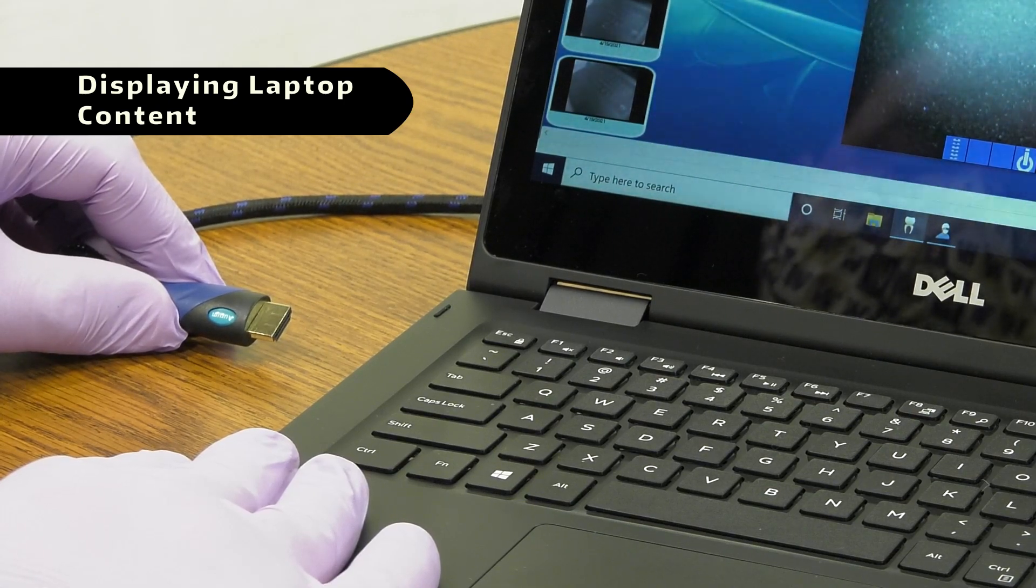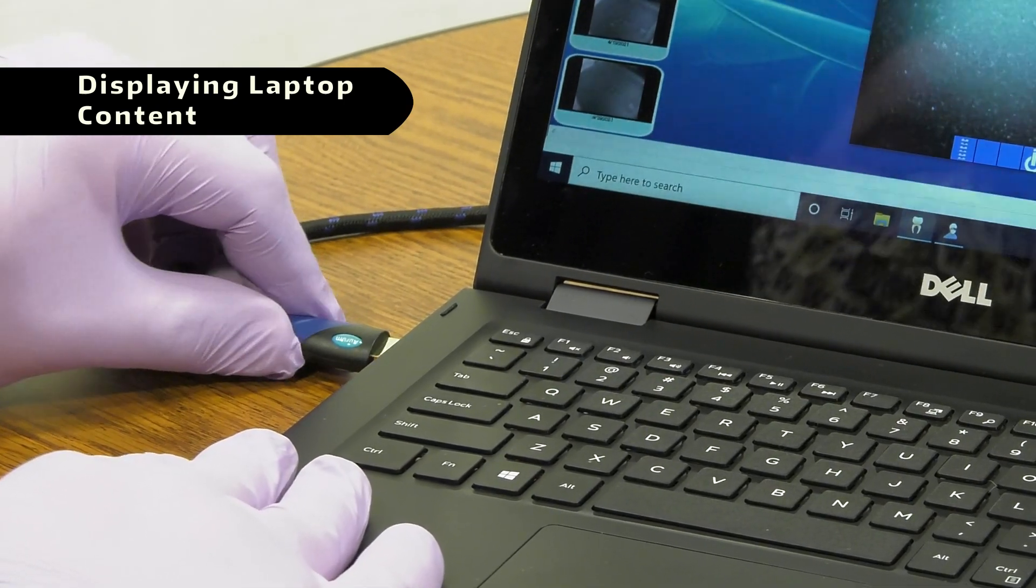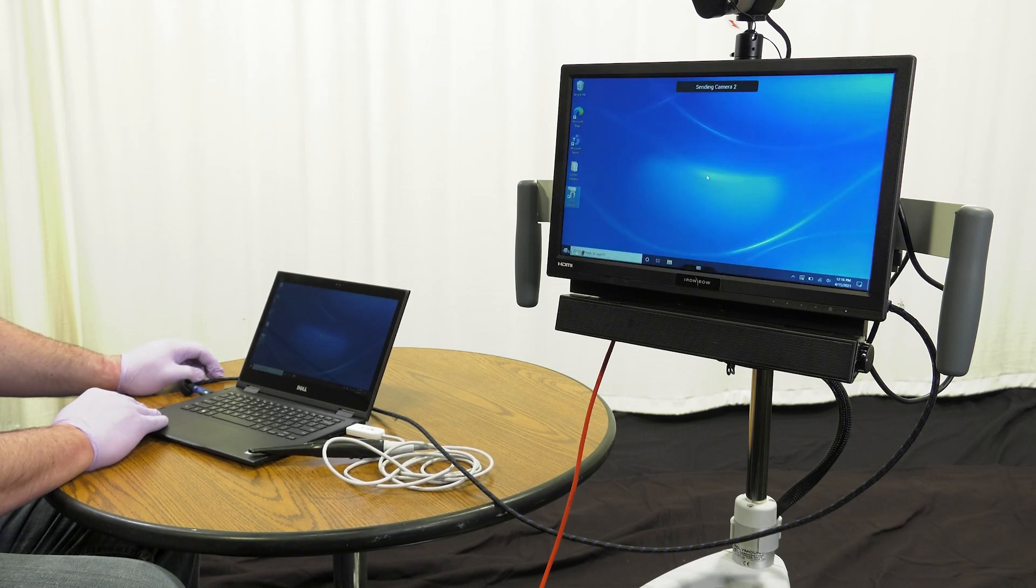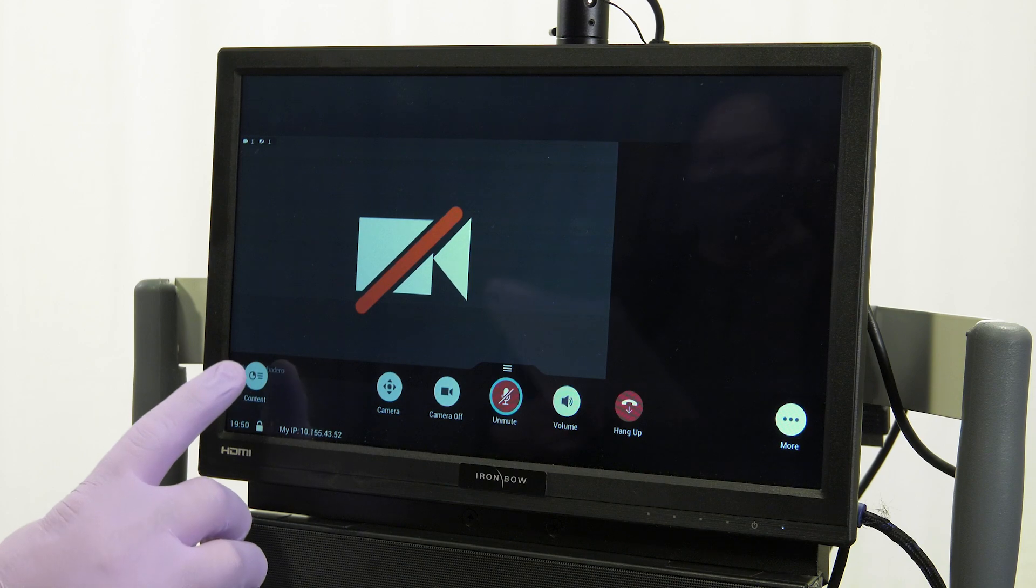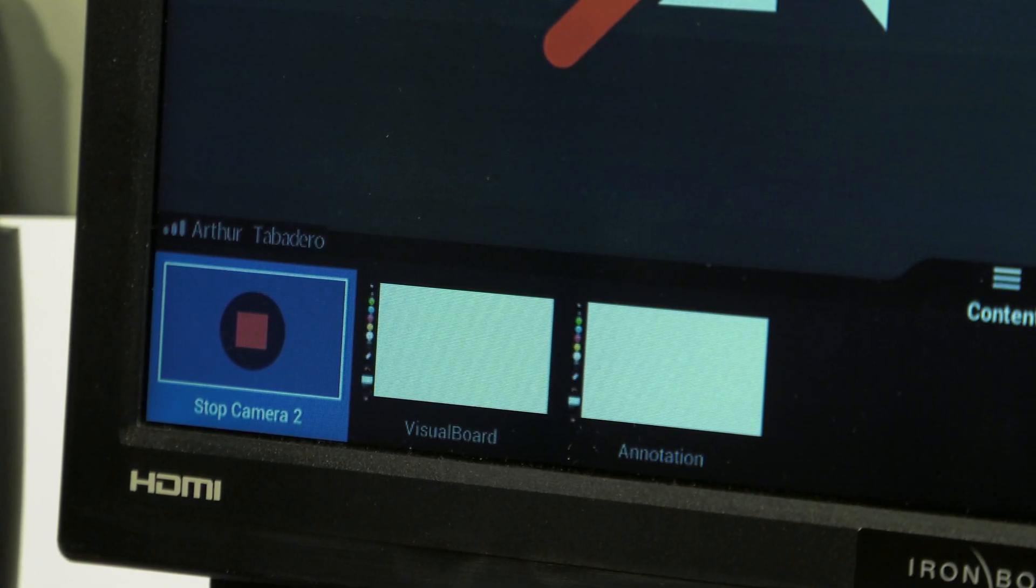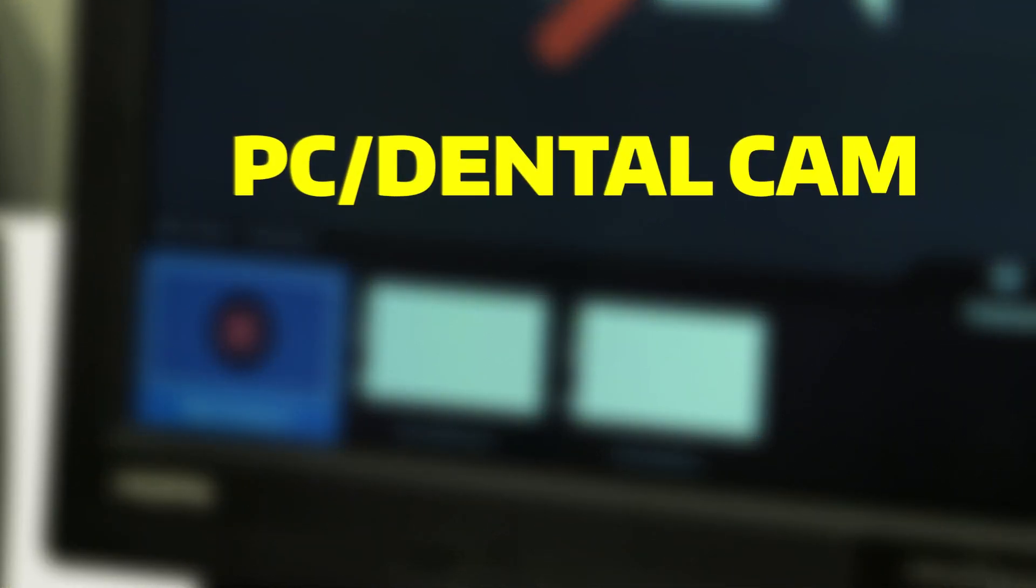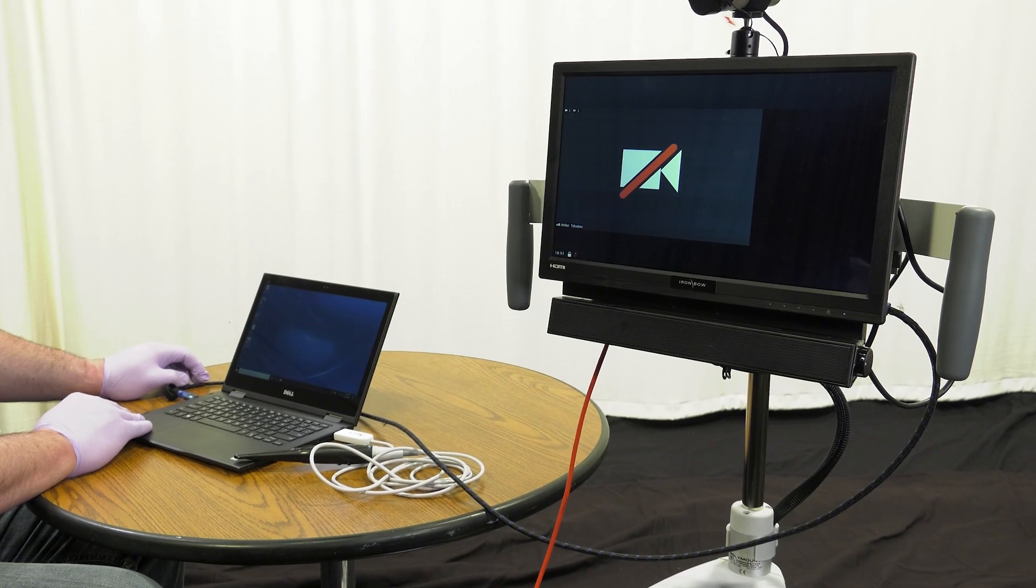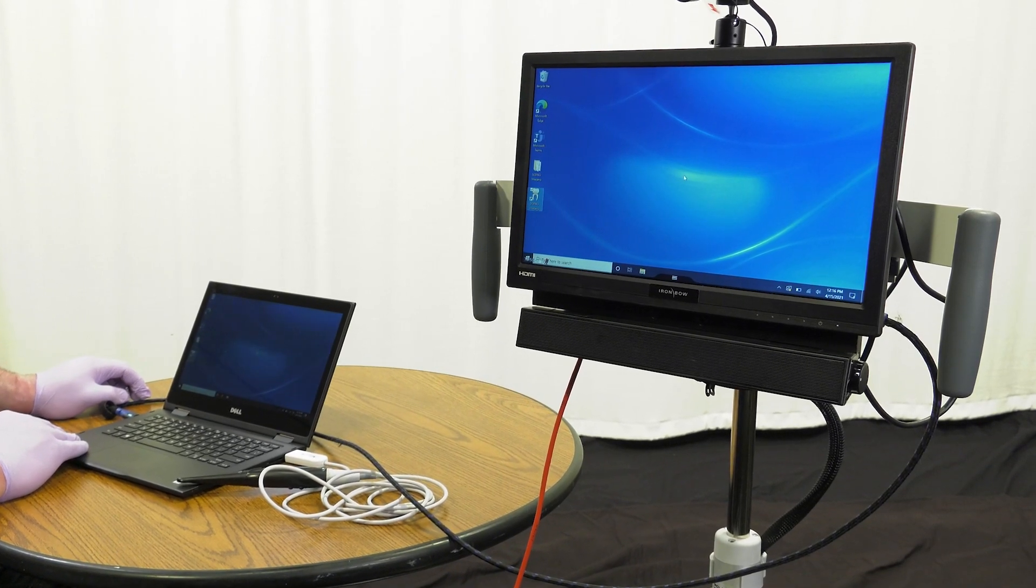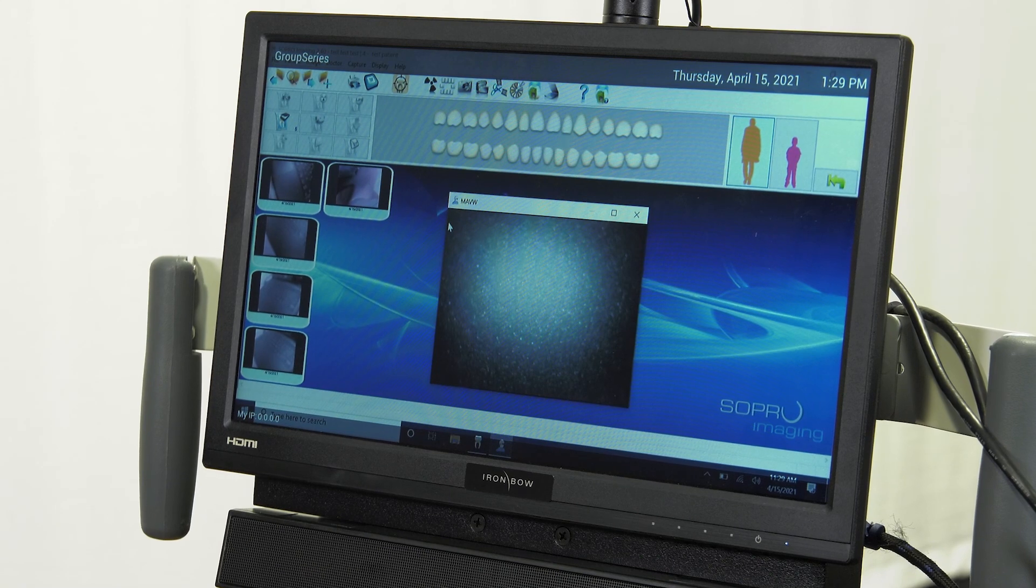To display the laptop contents, connect the cart's video cable to the input display port of the laptop using an HDMI cable or display adapter. If the content is not automatically displayed, tap the Polycom unit screen to pull up the video controls. At the bottom left, tap Content to display a list of inputs. Tap PC slash Dental Cam and the laptop content will start to display on the call. Once the video cable is connected to the laptop, the laptop and Polycom unit will detect the connection and display the content to the call automatically.